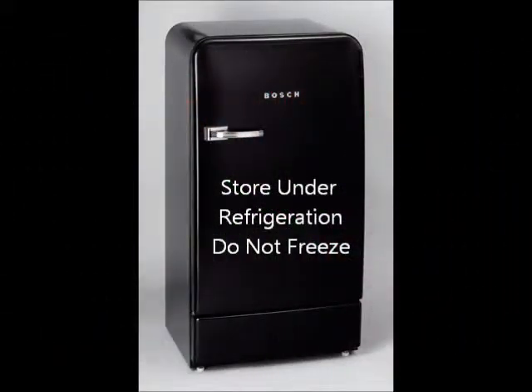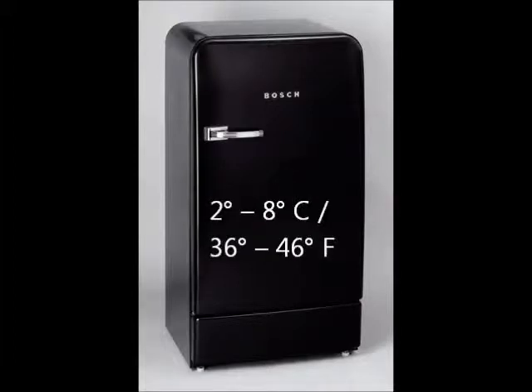Firstly, it is important to store the kit under normal refrigeration, and that means 2 to 8 degrees Celsius, or 36 to 46 degrees Fahrenheit. Do not freeze this kit.